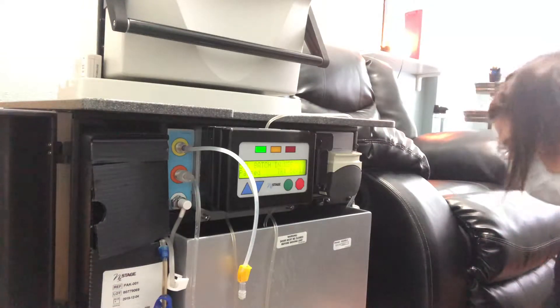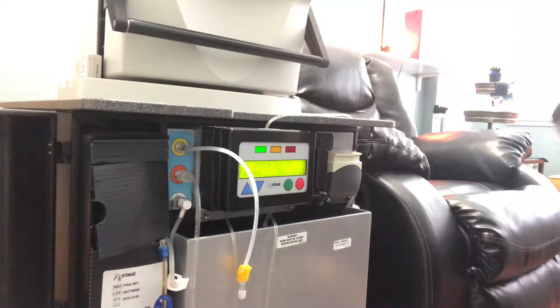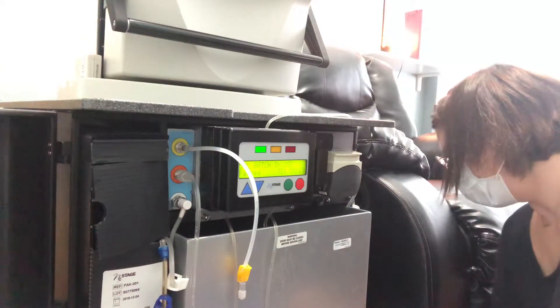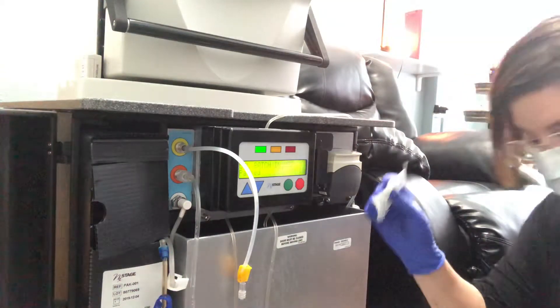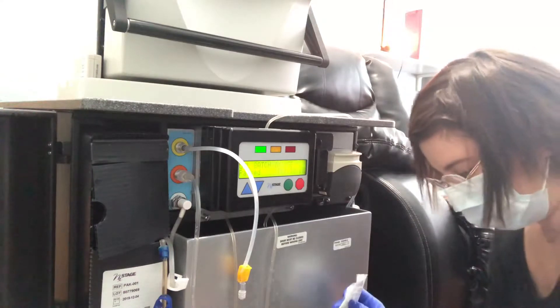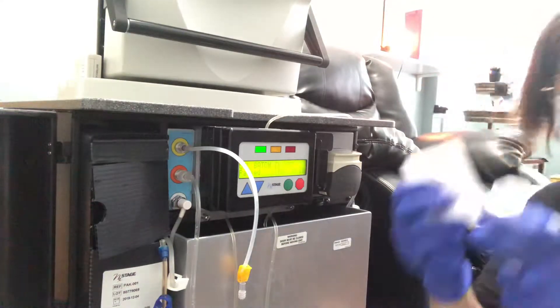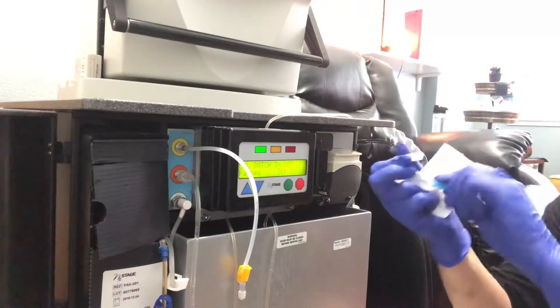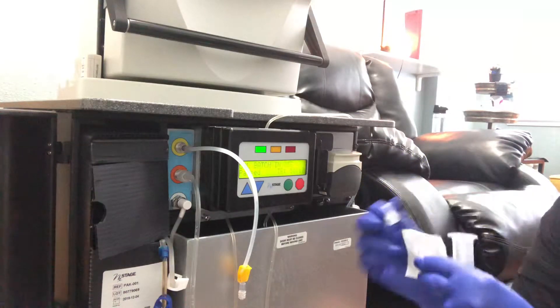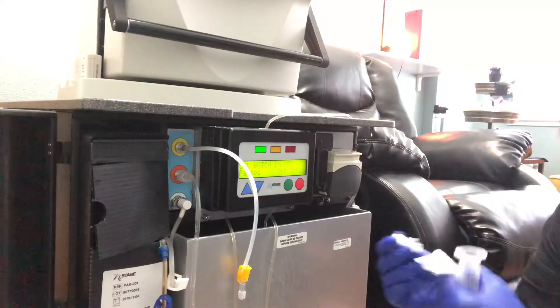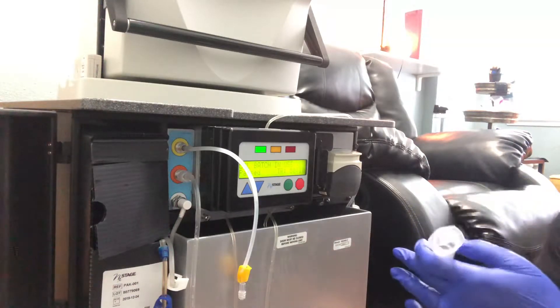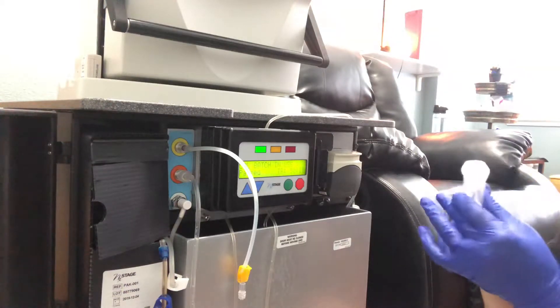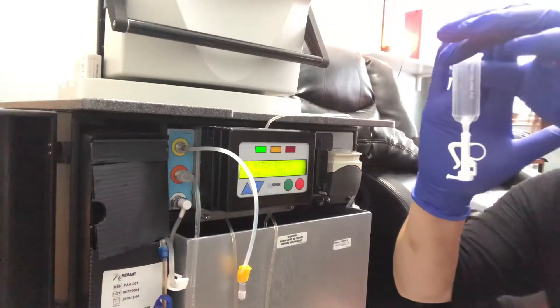Okay, so now we are going to connect the vacuette to the female-to-female connector. So this is the vacuette. So it looks like that.